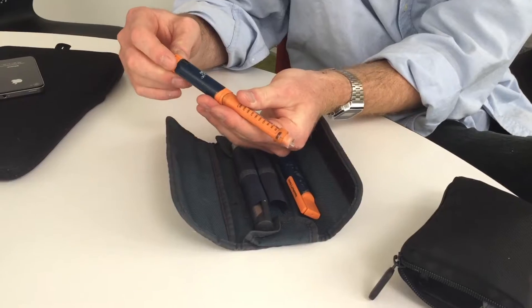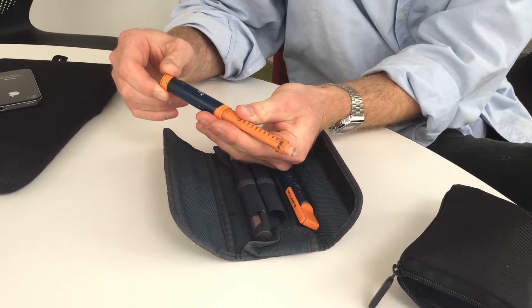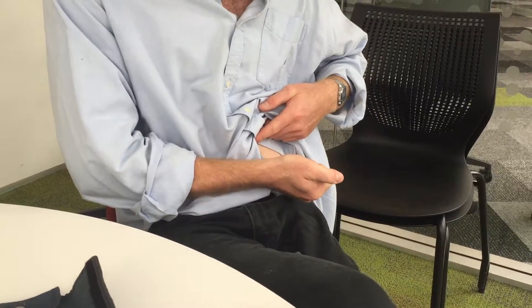I also use an insulin injecting kit, which involves insulin in the kit. I then inject into my stomach, and that brings down my glucose levels. The Freestyle Libre would make it a lot easier and simpler to test my blood glucose levels.